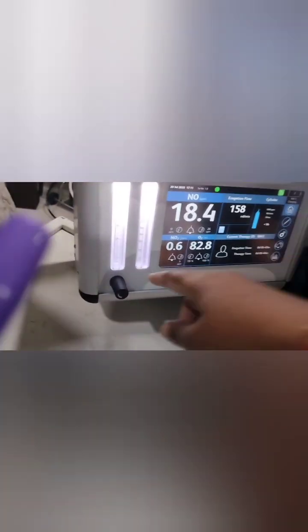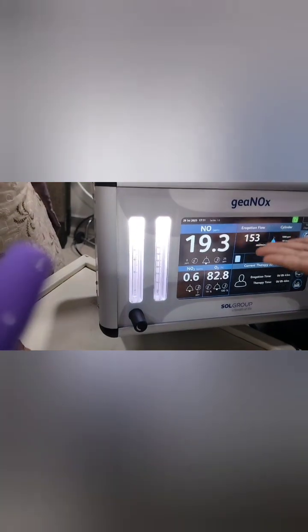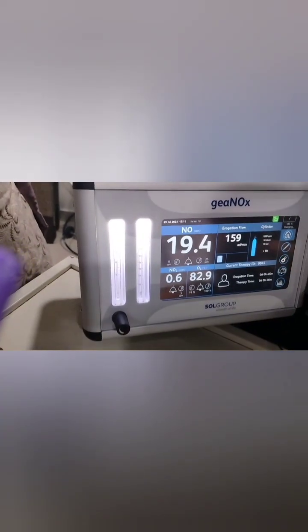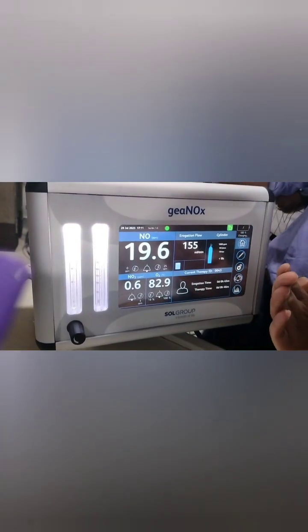The coarse knob goes up to 50 — so 10 on the scale means up to that point only. You can keep increasing manually even without calculating, just watching the display, but it will waste gas. The calculator method is the recommended way to set the correct flow.